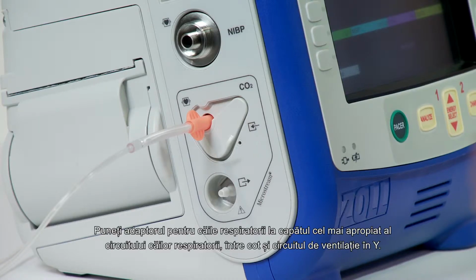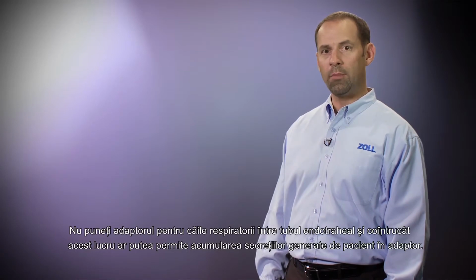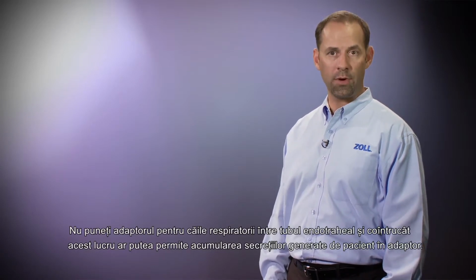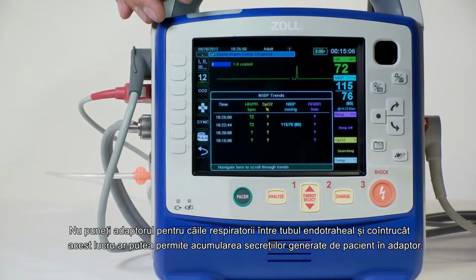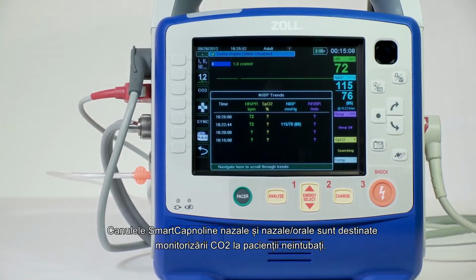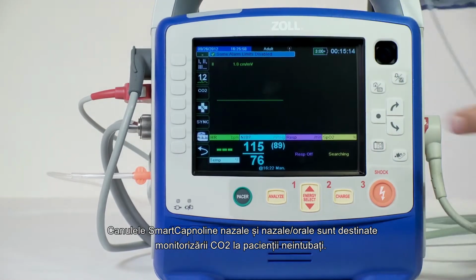Place the airway adapter at the proximal end of the airway circuit between the elbow and the ventilator circuit Y. Do not place the airway adapter between the endotracheal tube and the elbow, as this may allow patient secretions to accumulate in the adapter. The smart Capno line nasal and nasal-oral cannulas are intended for monitoring CO2 in non-intubated patients.